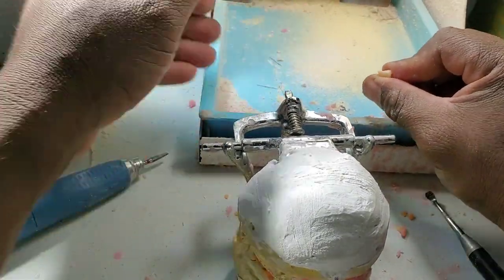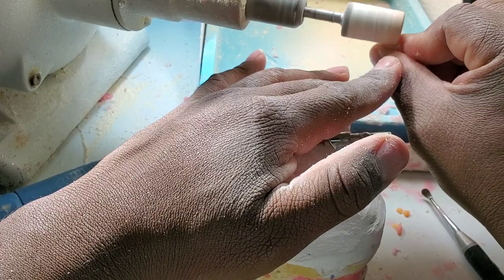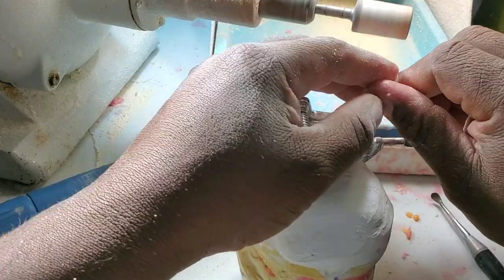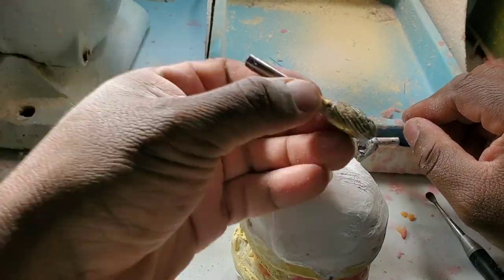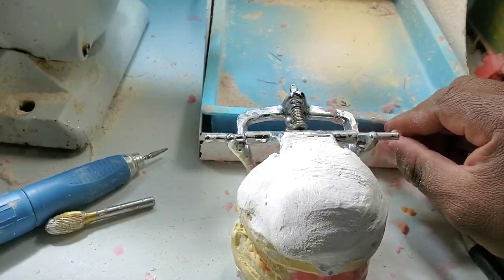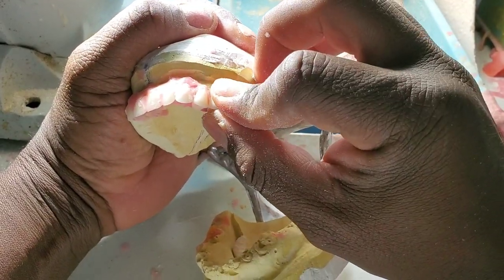I'm still grinding here — I grab the tooth with my two fingers and I grind. I'm using a kind of sandy type of bur. I love it and I do everything with it. A lot of people use something different, but this is my favorite tool. I'm still putting my bicuspids, my pre-molars, on this immediate denture.